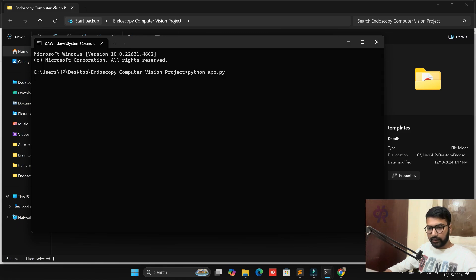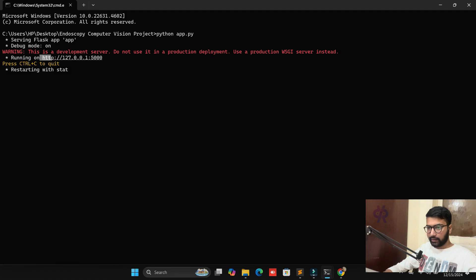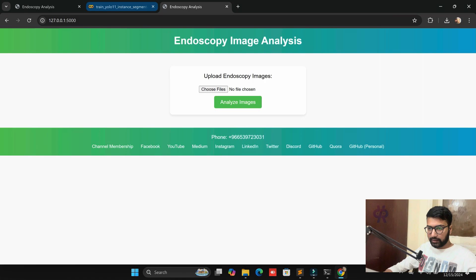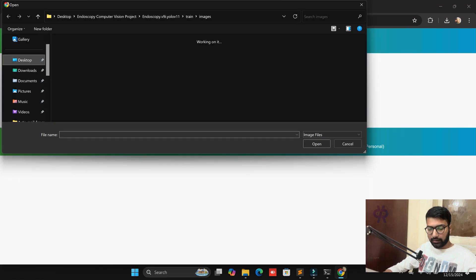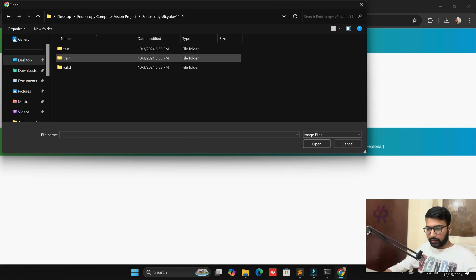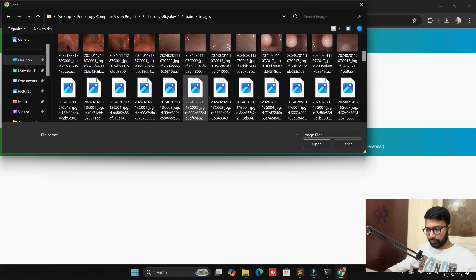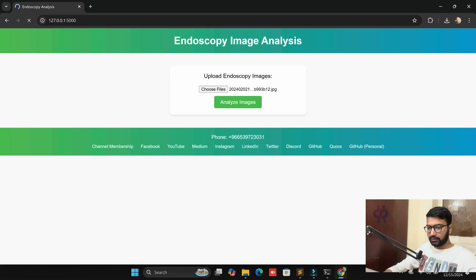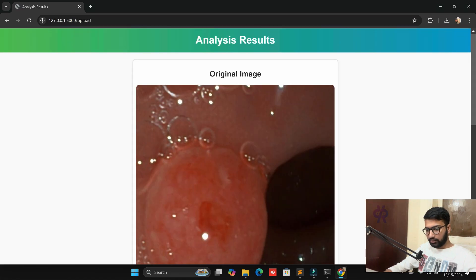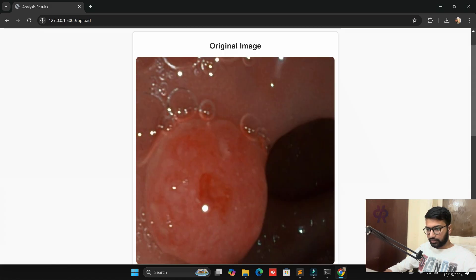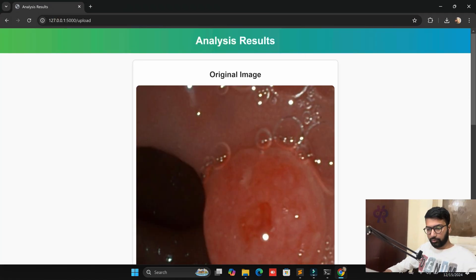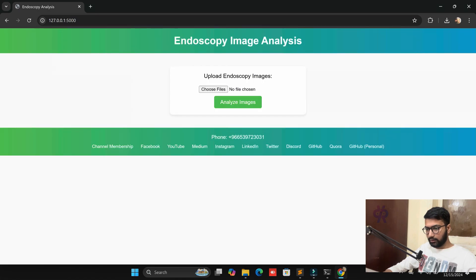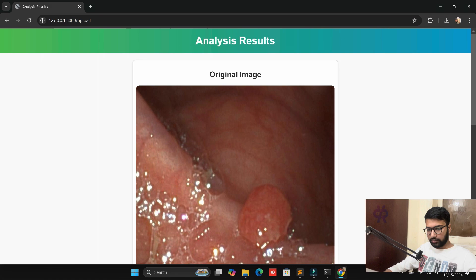Now I'm making it very simple. Just CMD and call python app.py. When you run python app.py and load the model, you will get results successfully. Easy interface provided to you. Just copy URL and paste into your browser. You get the results. This type of interface first of all. I have already some data about test images. Let me show you. When it's not initialized, result you try it again. You can get the result - result name and here original image. Now I'm trying one more picture. Most probably class is polyps. Let me check it out - the ulcer and bleeding type.